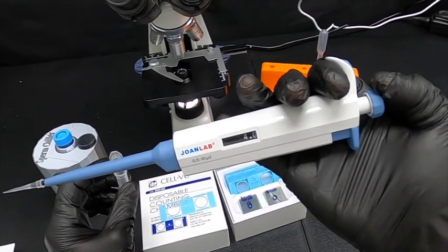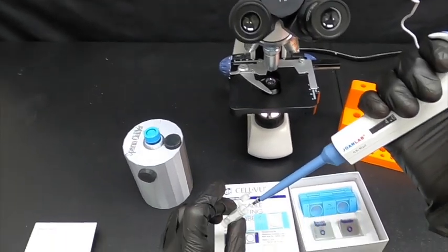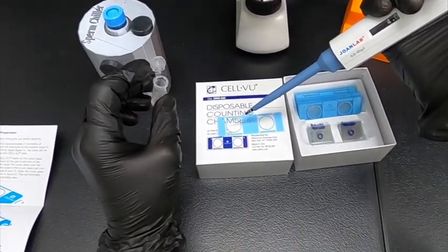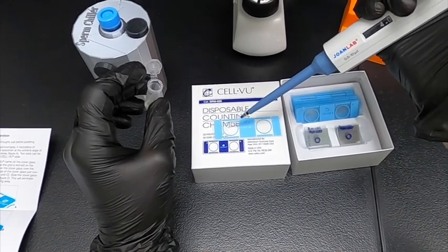A little bit plus or minus will be okay, but let's keep it as close to four as possible. We'll insert into the tube and place barely off center to the left of the slide.